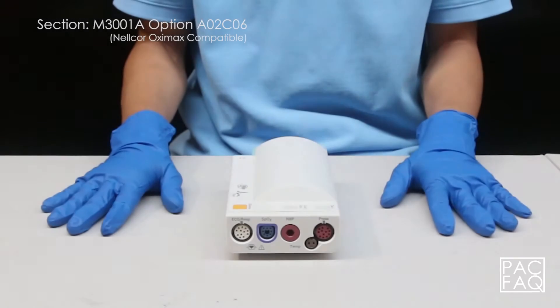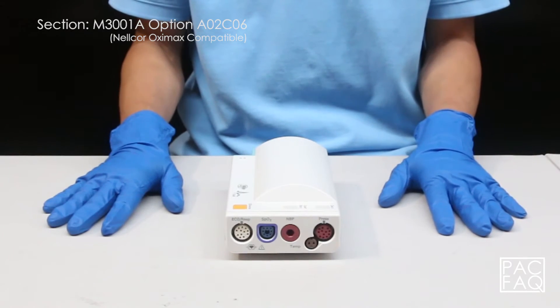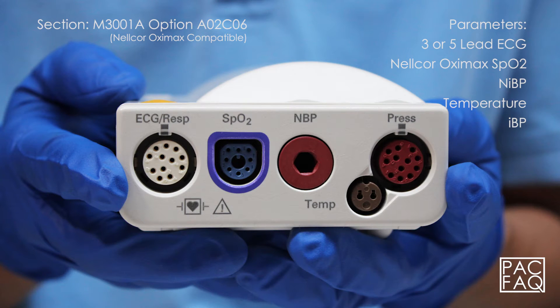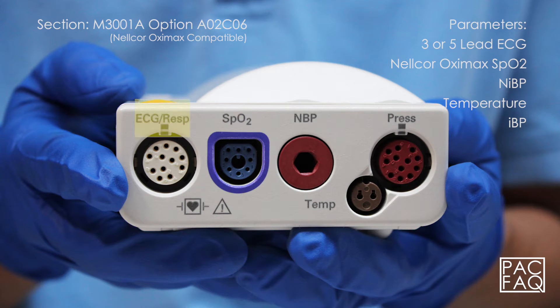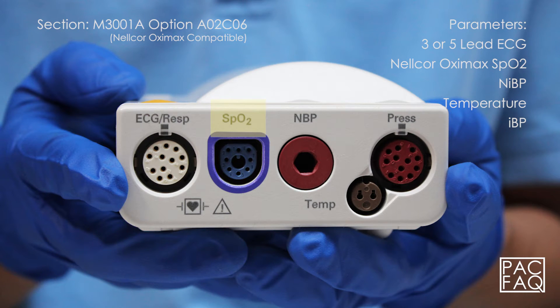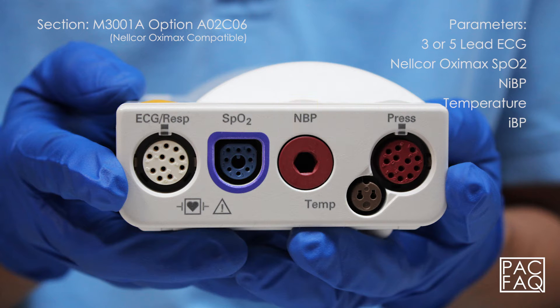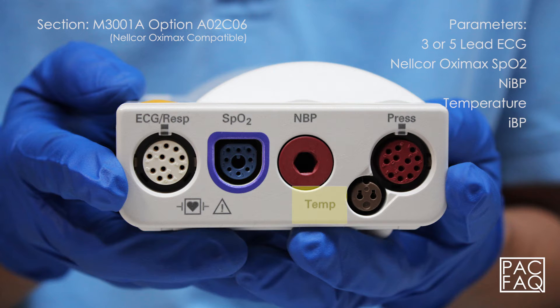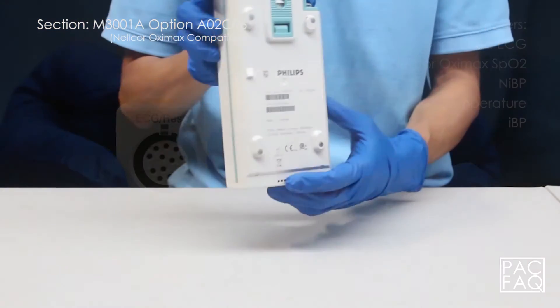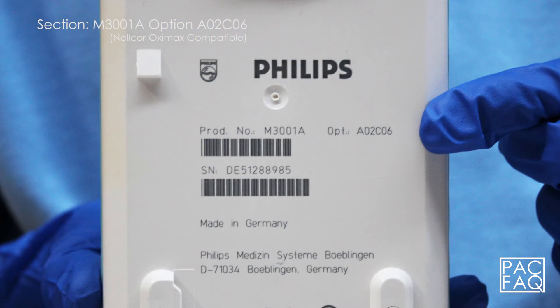Here we have option A02 C06. The unit comes with parameters 3 or 5 lead ECG, Nellcor OxyMax SPO2, non-invasive blood pressure, temperature, and invasive blood pressure. The product identification and serial numbers are located on the bottom of the unit.